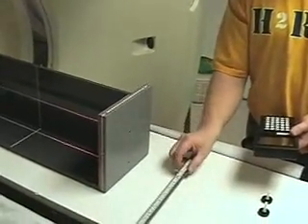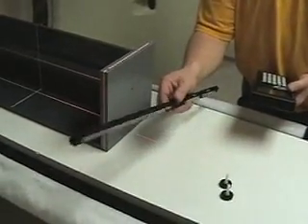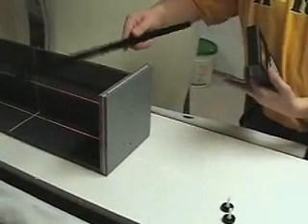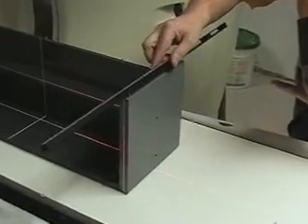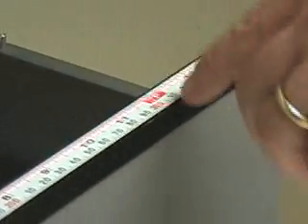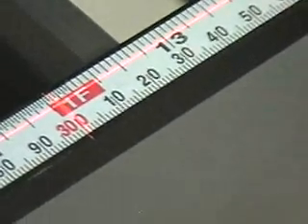To do that, you're going to need the ruler, the phantom, and the two nylon screws. Place the ruler on the phantom using the little grommet holes on the pegs so it's nice and level. You'll notice that it's hitting the 300 line, which is actually the isocenter. Now we're going to calibrate — or verify — that each centimeter we tell the laser to move, it's actually moving that distance. We're going to use the hand pendant to do that, and we need to verify that the cursor or caret is selected by the X arm.